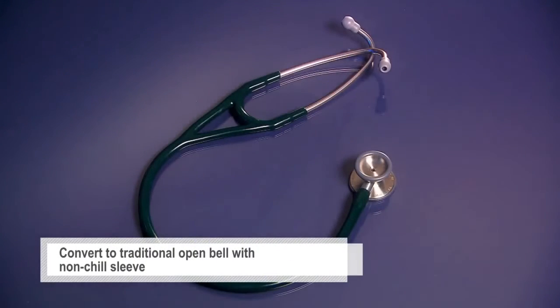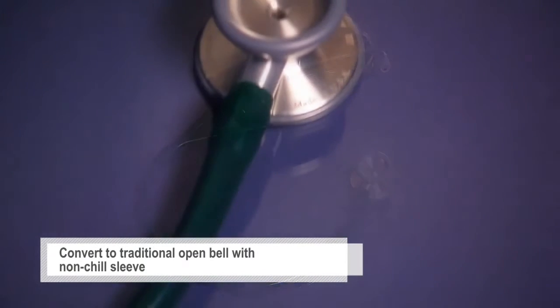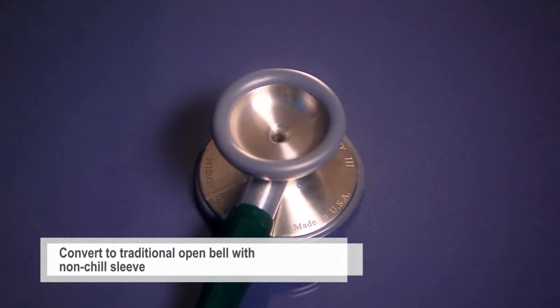You can easily convert it to a traditional open bell by removing the diaphragm on the pediatric side and installing the non-chill sleeve.